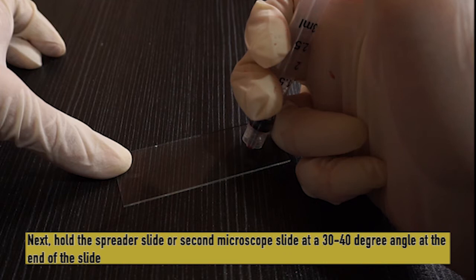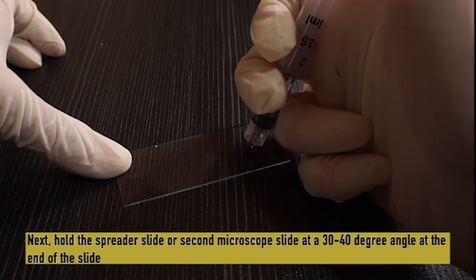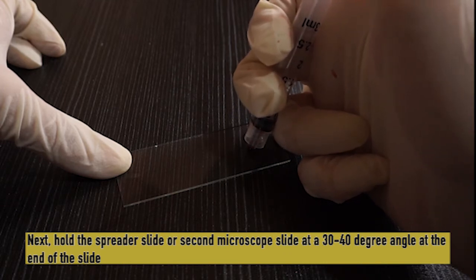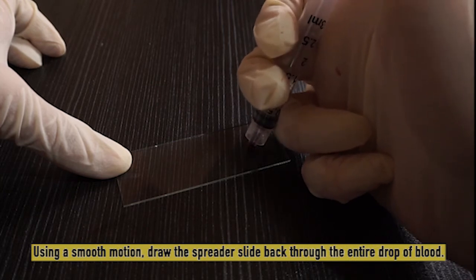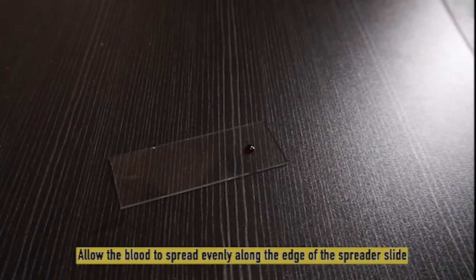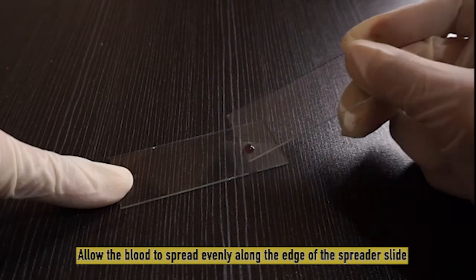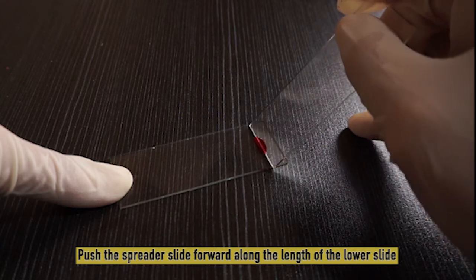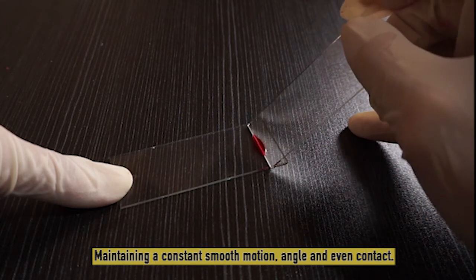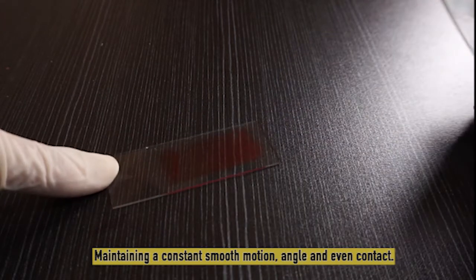Next, hold the spreader slide or second microscope slide at a 30 to 40 degree angle at the end of the slide. Using a smooth motion, draw the spreader slide back through the entire drop of blood. Allow the blood to spread evenly along the edge of the spreader slide. Push the spreader slide forward along the length of the lower slide, maintaining a constant smooth motion, angle, and even contact.